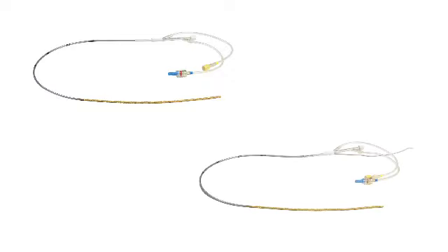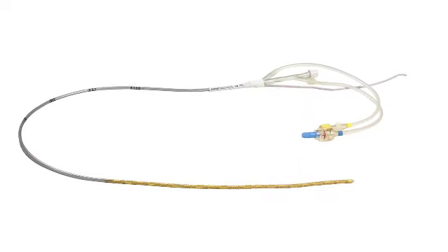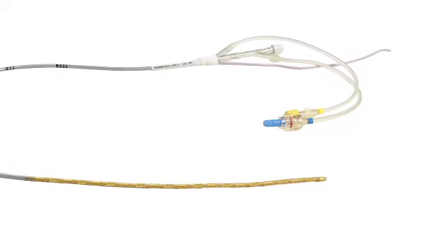The InnerCool RTX may be used with either the InnerCool standard catheter or the InnerCool Accutrol catheter. The catheters are single-use devices that are packaged sterile. When using a standard catheter, a separate, independently placed 400 series thermistor-based temperature probe is required to provide physiologic temperature feedback to the InnerCool RTX console. InnerCool Accutrol catheters have a thermistor integrated into the distal tip of the catheter, eliminating the need for an independently placed temperature probe.